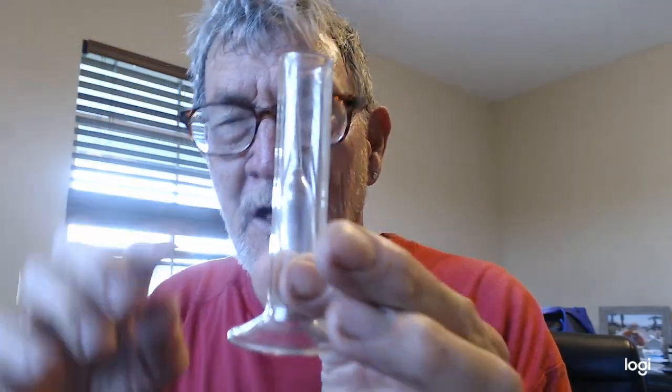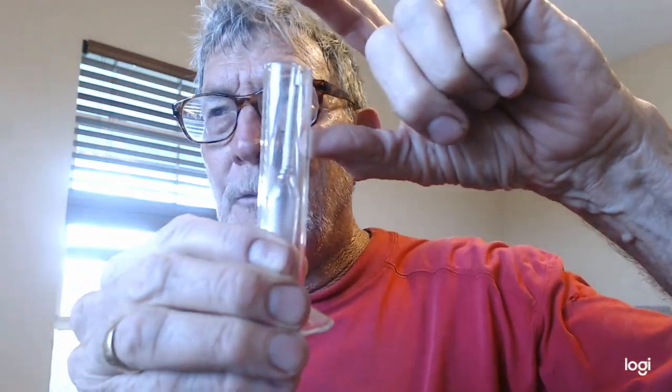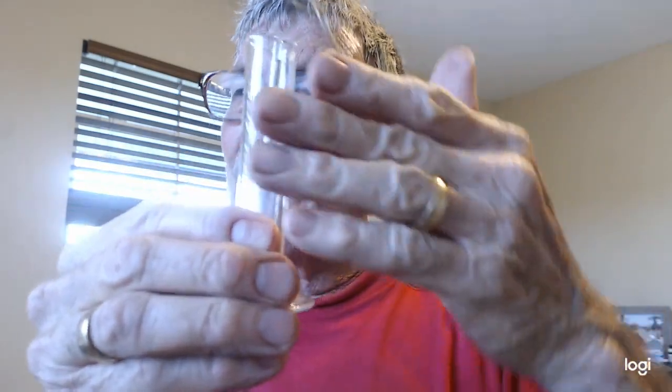And there's one final thing, and that's specific gravity. These strips do specific gravity okay, but they're not the gold standard for specific gravity. The gold standard is to actually weigh the urine. This basically weighs exactly as much as water. I mean, it's glass, but it's got air in it. They've made it so that it weighs exactly as much as water. You pour the urine in there. If the urine is heavier, the thing will float up higher. If the urine is too light, if your specific gravity is too low, the water will be heavier than the urine and it'll sink down in too far.